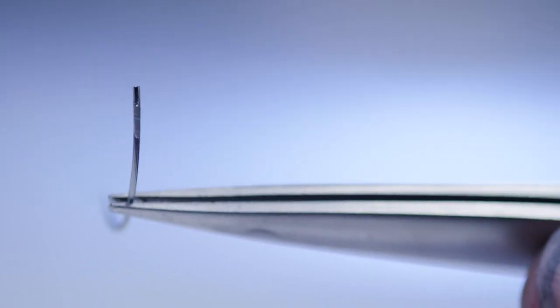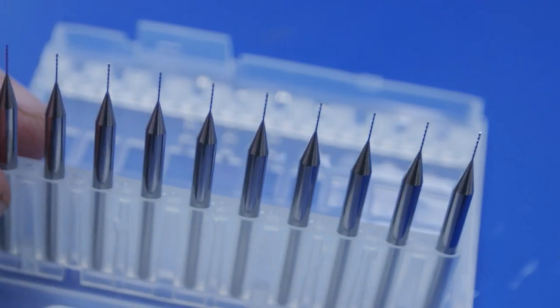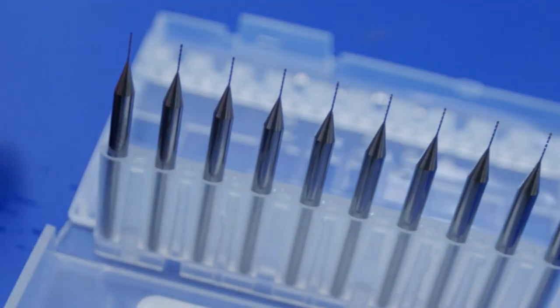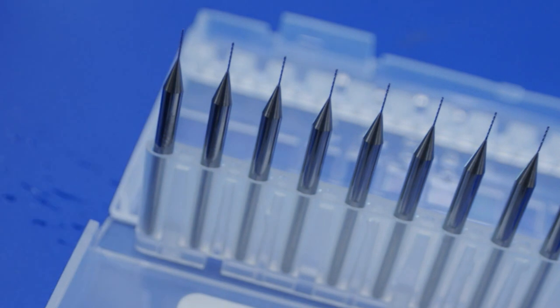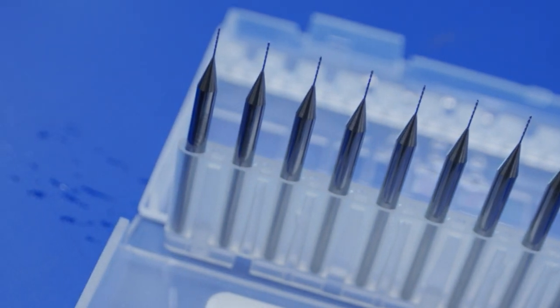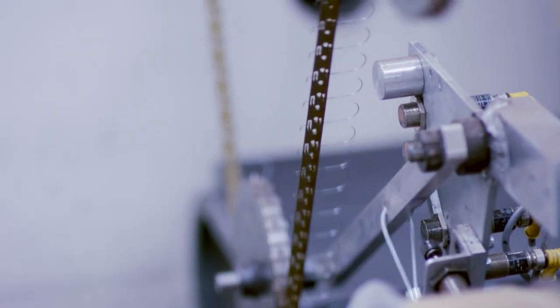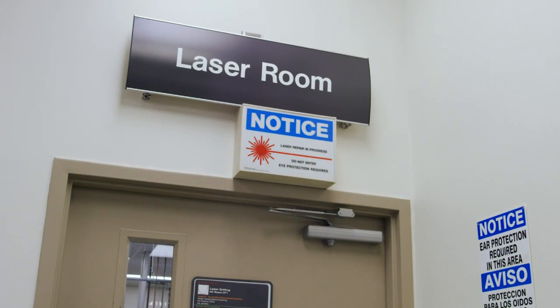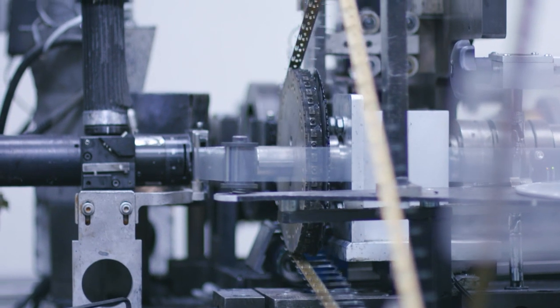Needles like the Ethicon developed steel alloy Etheloid need a really strong drill, or in this case, a laser. When the laser hits the very end of the needle, it's totally focused right there on that one spot.